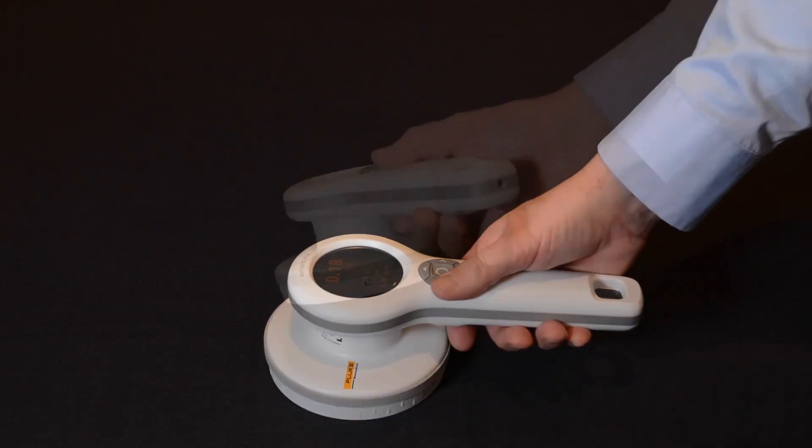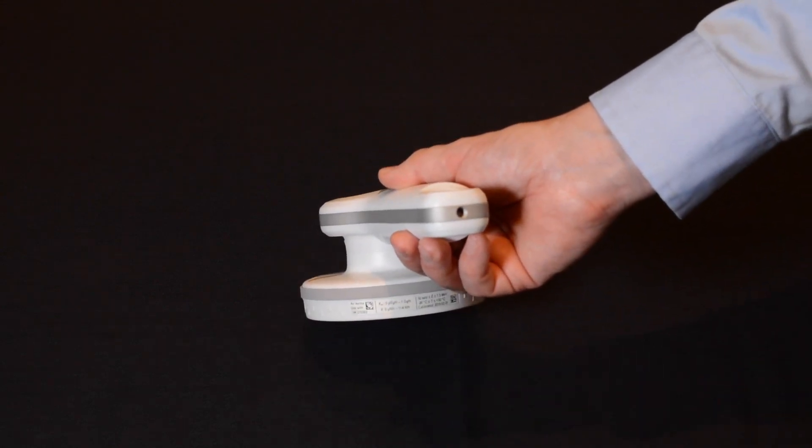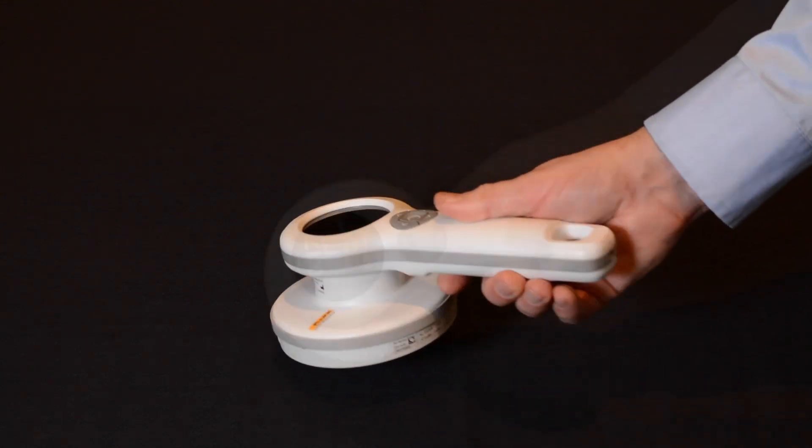You can add a shoulder arm or wrist strap for easy carrying. There is a threading at the end of the device, so you can place the meter on a camera tripod.